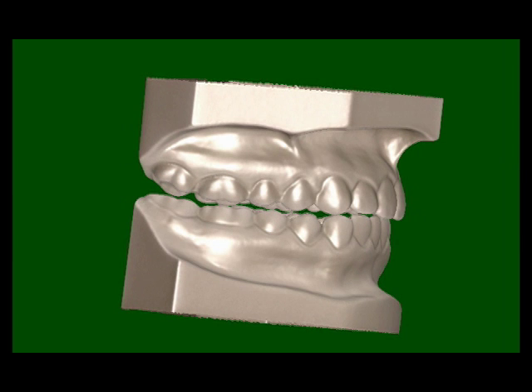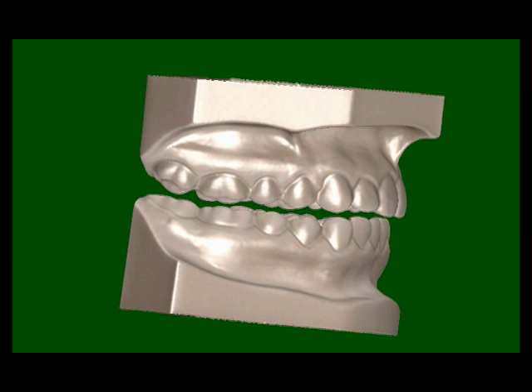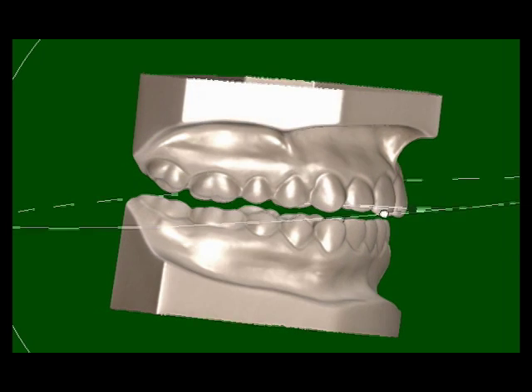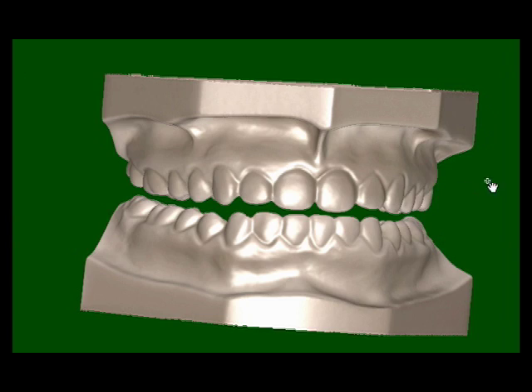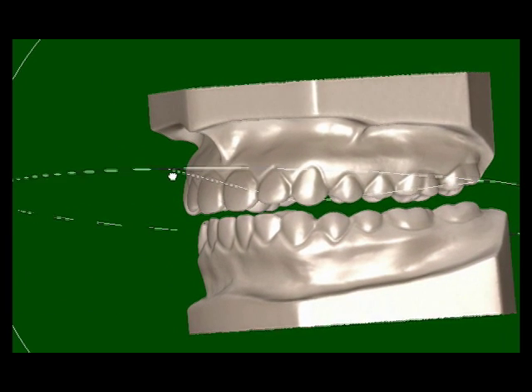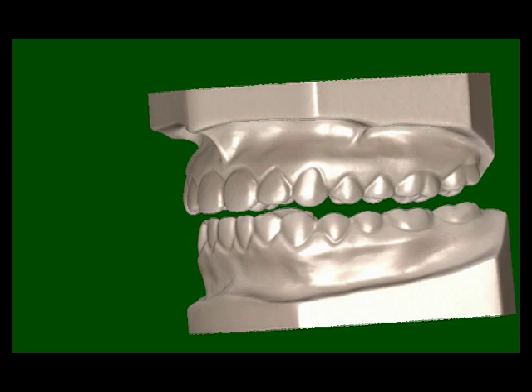A splint design starts with setting the opening. The bite should be in centric relation and ideally close to the desired splint thickness. It is important to be able to look through the occlusion to ensure no lateral interferences.